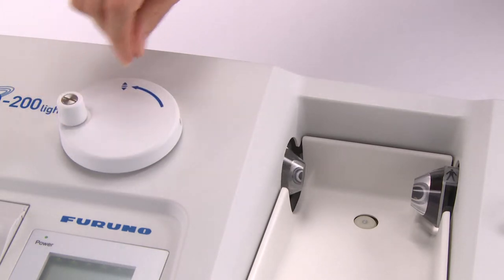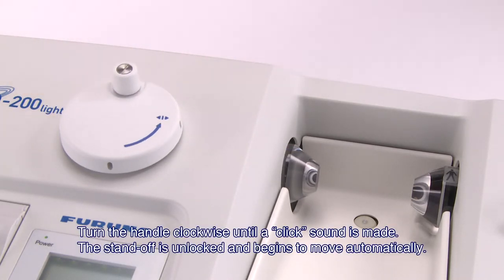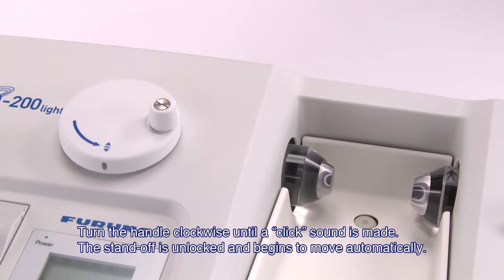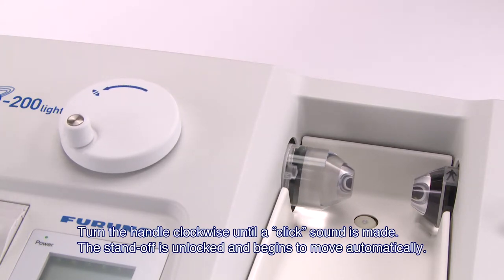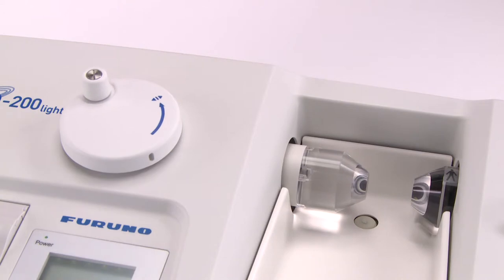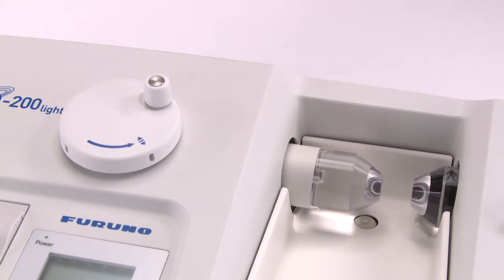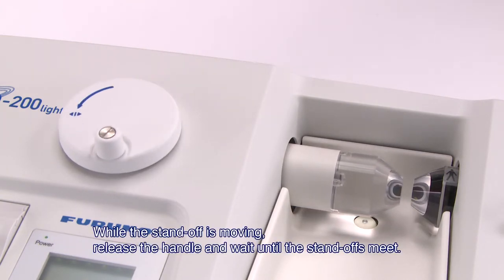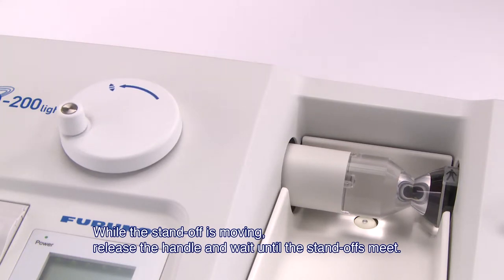Following the on-screen prompts, turn the handle clockwise until a click sound is made. The standoff is unlocked and begins to move automatically. While the standoff is moving, release the handle and wait until the standoffs meet.